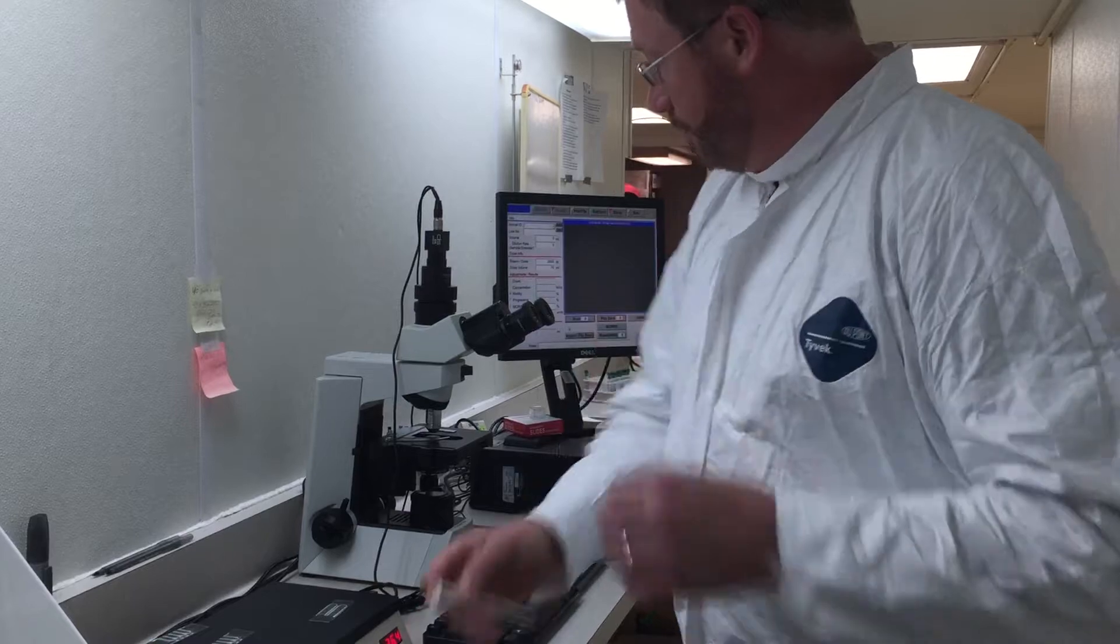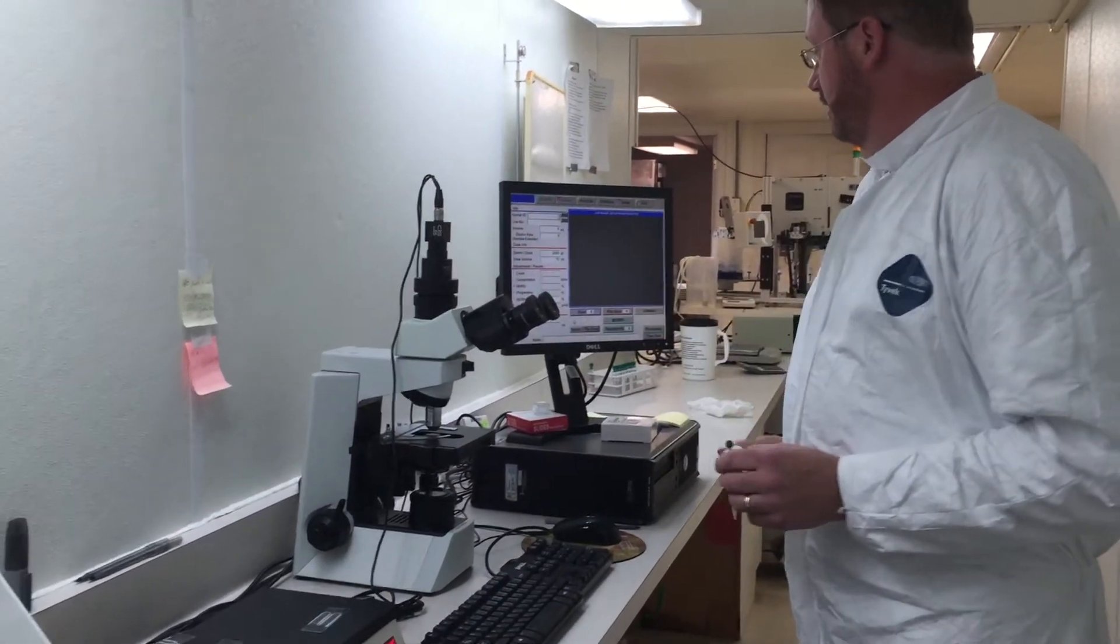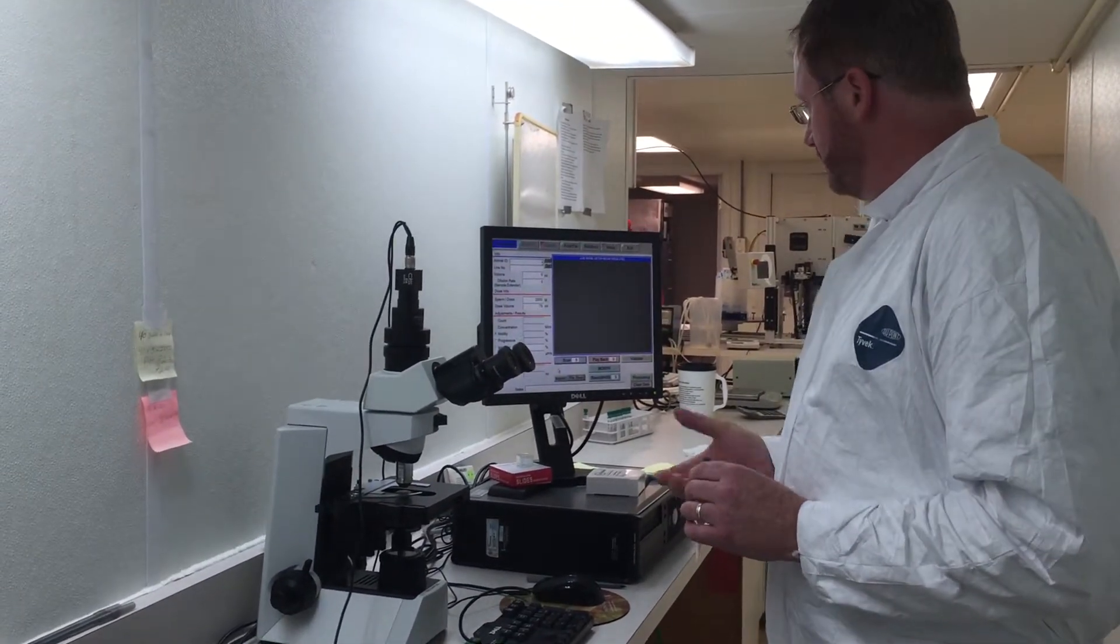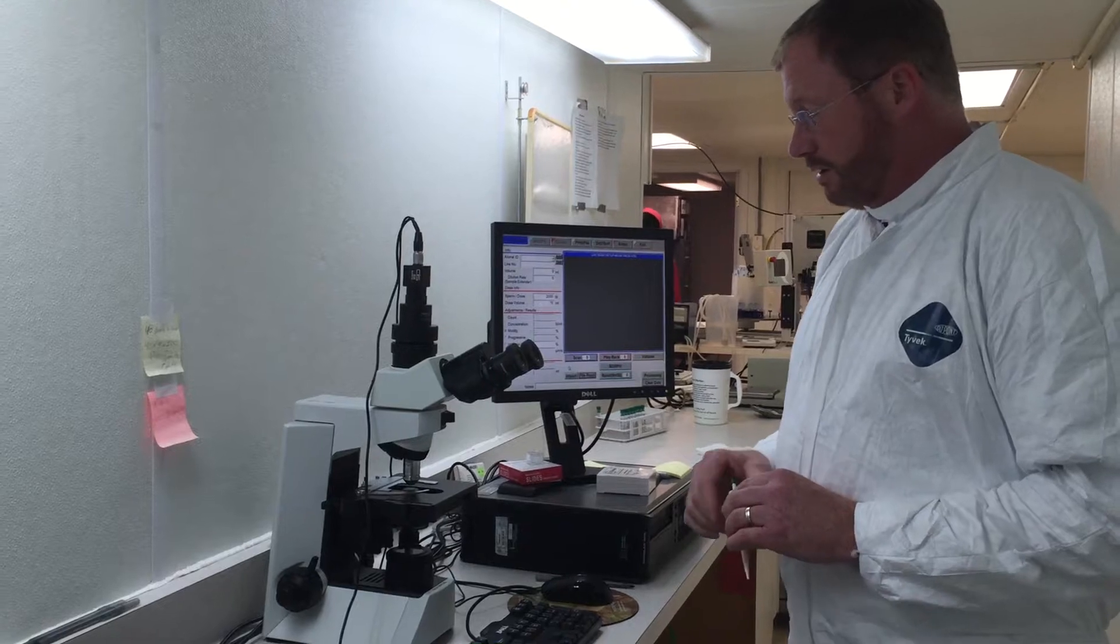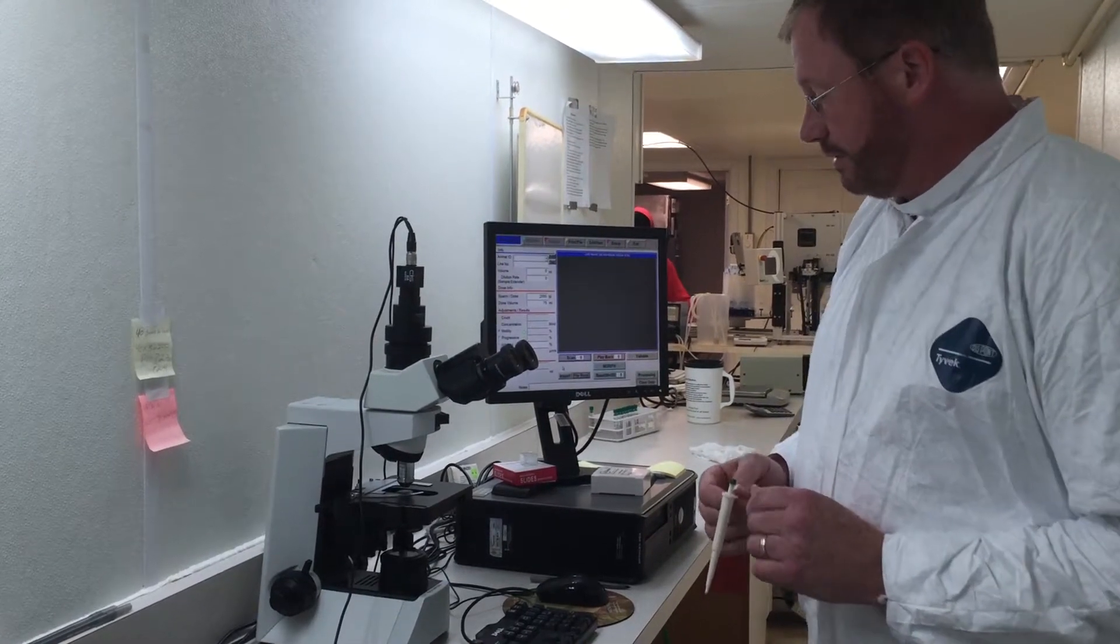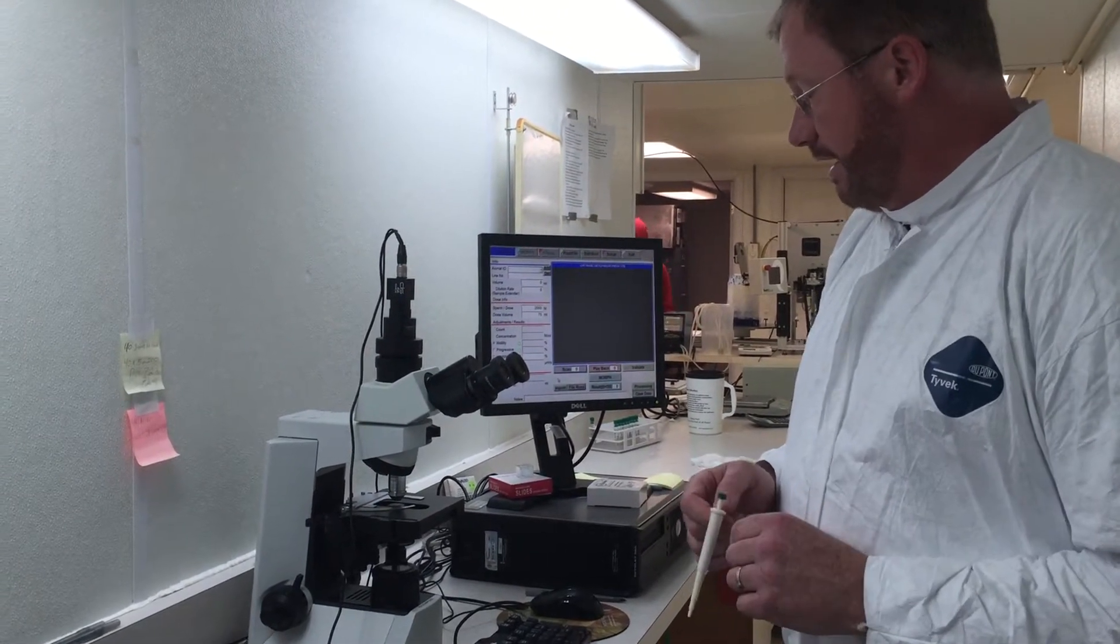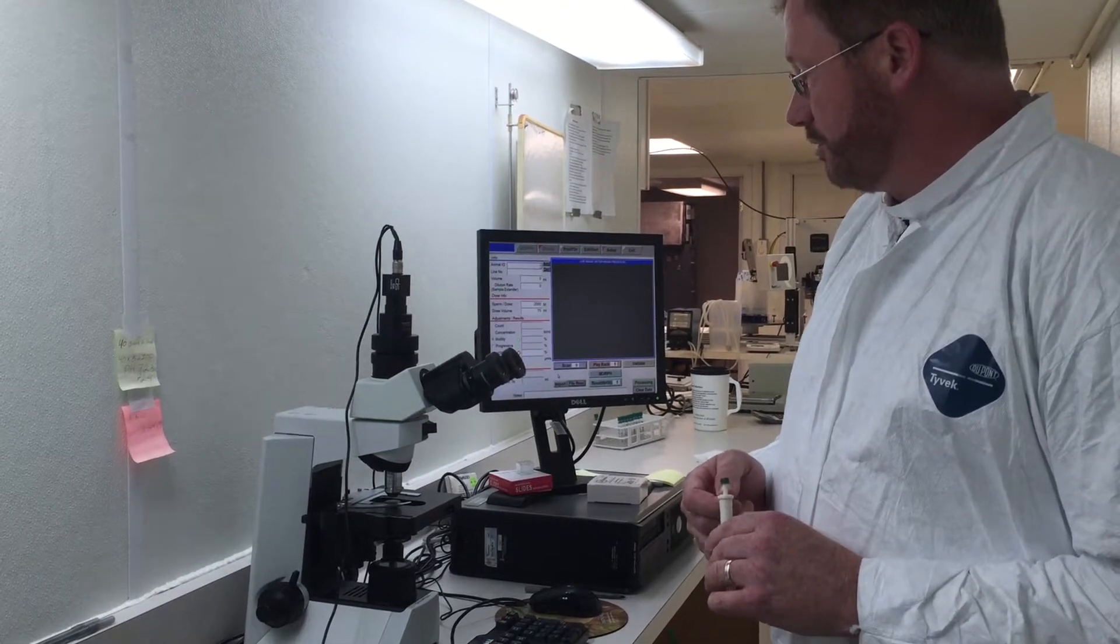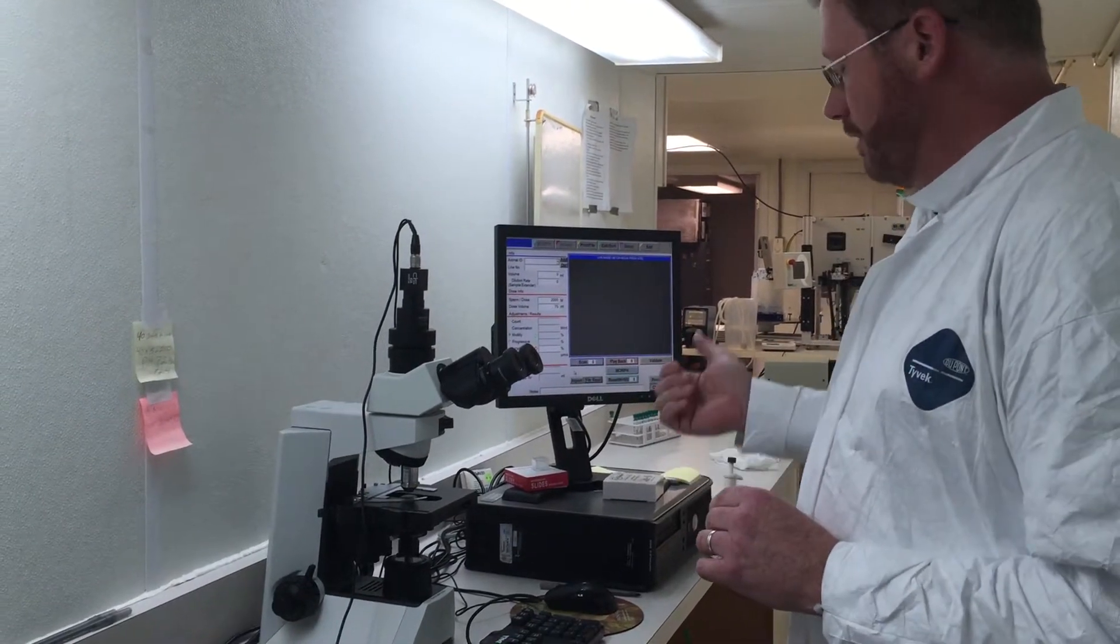Today we're going to be using a microscope with a camera attached to a monitor to make it easier to do the video and the counting, but you can use any microscope that you have. We can also provide microscopes and cameras, but we do not provide monitors.